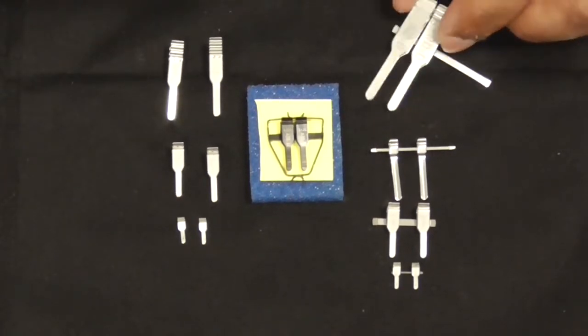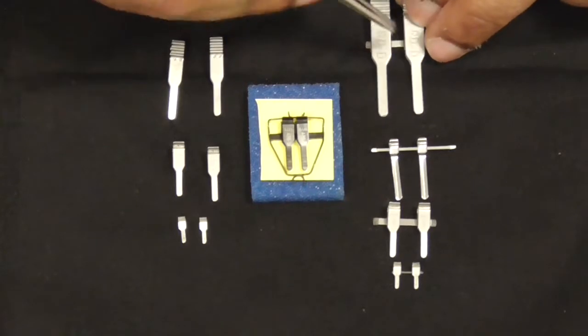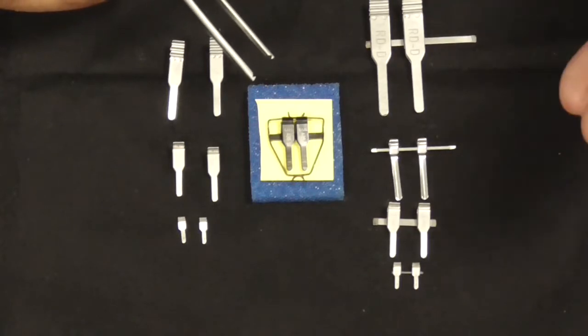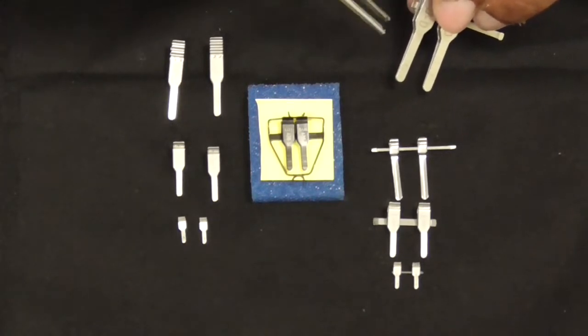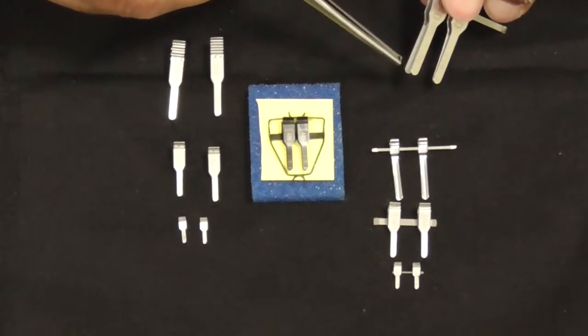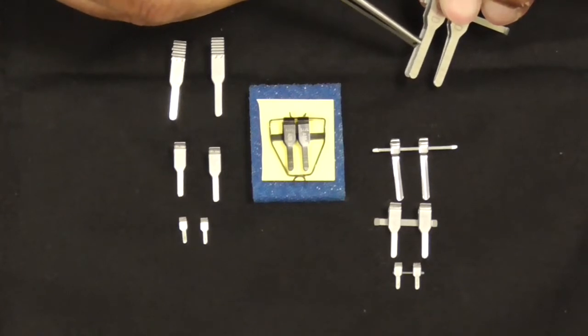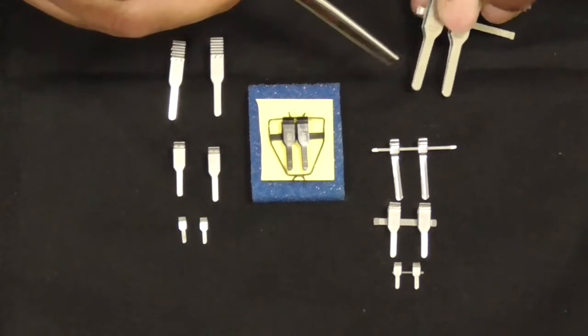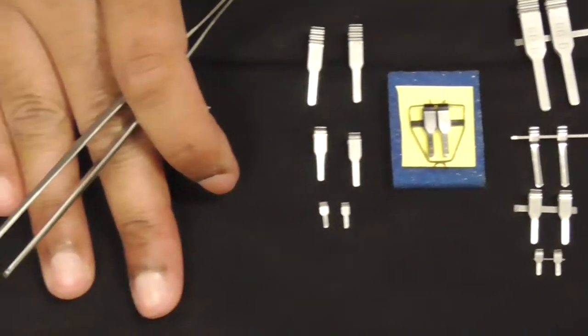The other difference between clamps are A clamps and V clamps. A stands for artery and V for vein. All V clamps can be used for arteries and veins, but arterial clamps—the A clamps—are used for much bigger, thicker-walled arteries. At the tip, they're sort of curled in to prevent too much crushing of the vessel and to prevent the vessel from slipping out. It's a little like a parrot beak. All these clamps are metallic and reusable because they can be autoclaved.